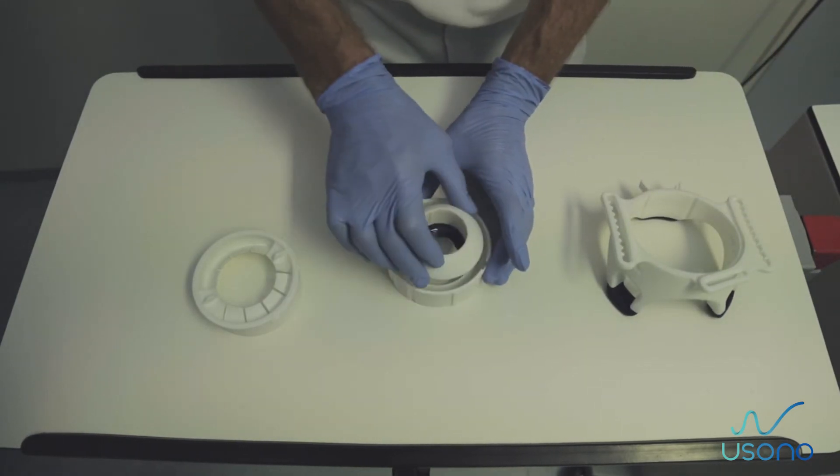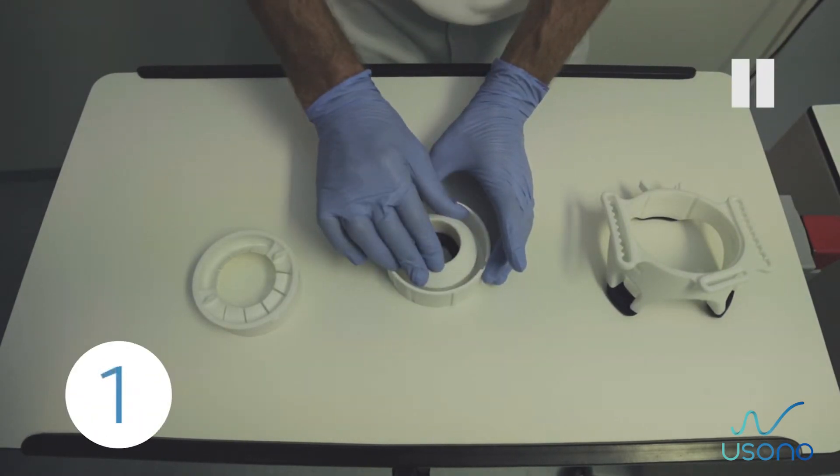Sphere mechanism. Step 1. Position the probe adapter inside the bottom sphere.